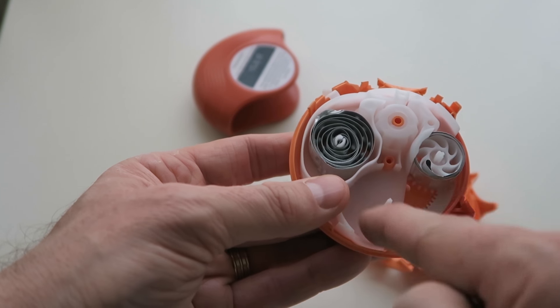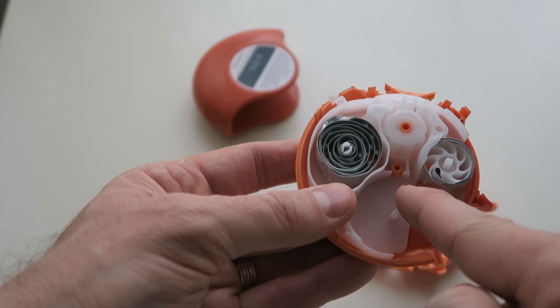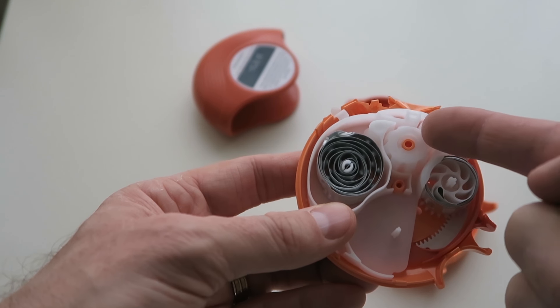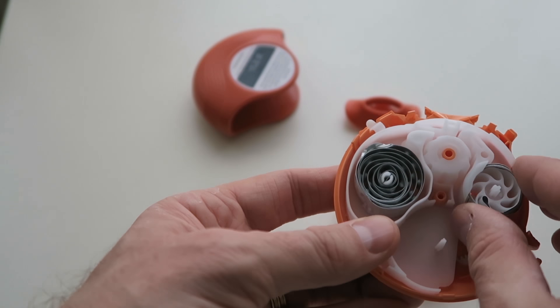So what you have is the little foil unused bits would come in here. It would feed up through the middle disc on the right side, and then it would split one side and the other.